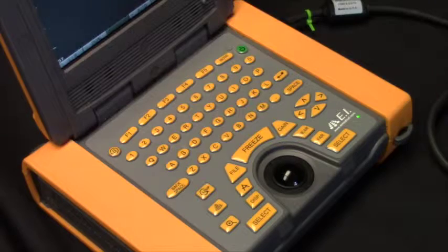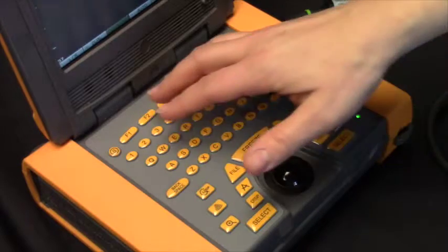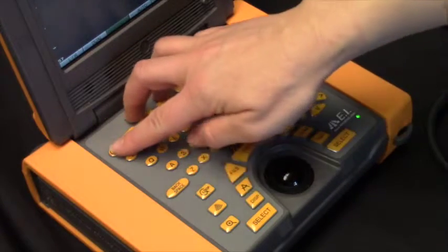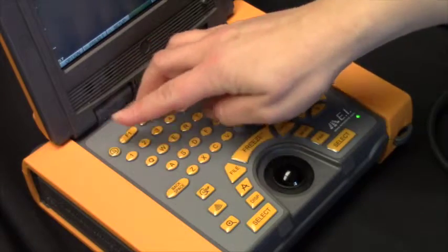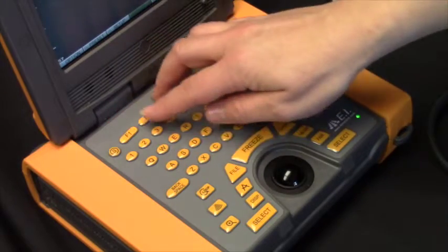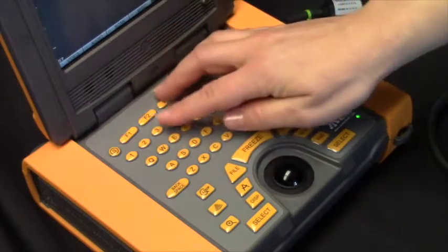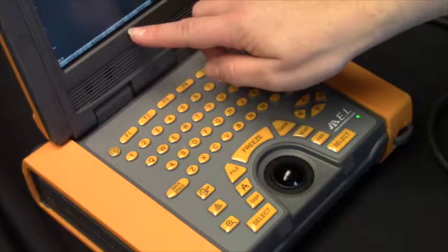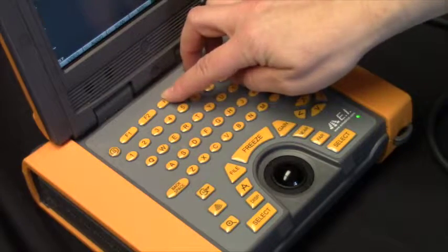To change the factory default setting for the length of the video loop, hit the super key, followed by the option key, which is F1, and then the scan selection, which is F3.